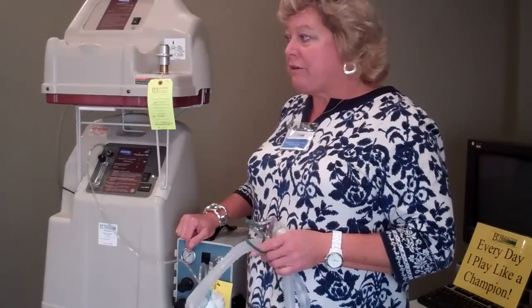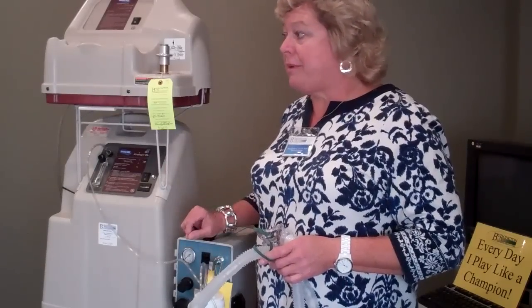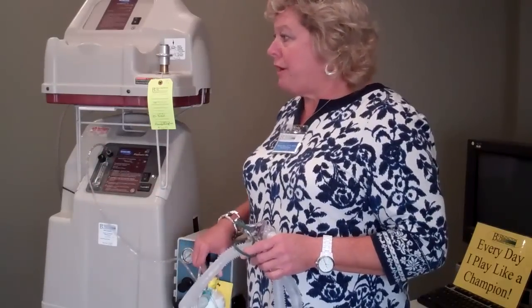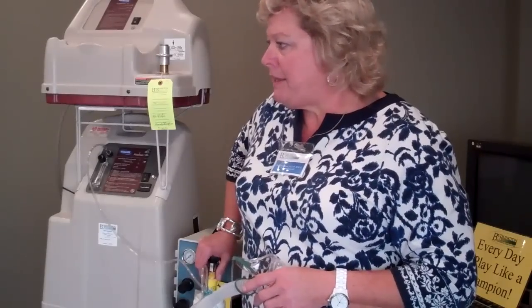If I do go higher, I'll go to 32%, but I have to remember it's going to dilute my oxygen a little bit — it's putting more air stream through. So I may have to shut this off a little bit or dial my concentrator up. I can very easily analyze one of these to see what kind of percentage I'm getting. But usually I just check their SATs to make sure I'm maintaining them.